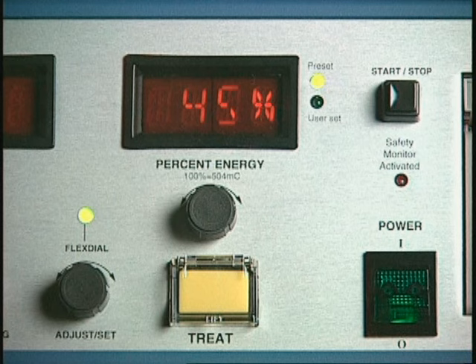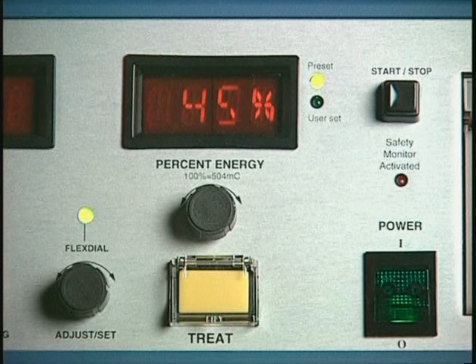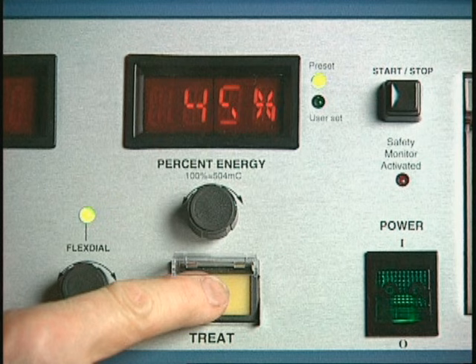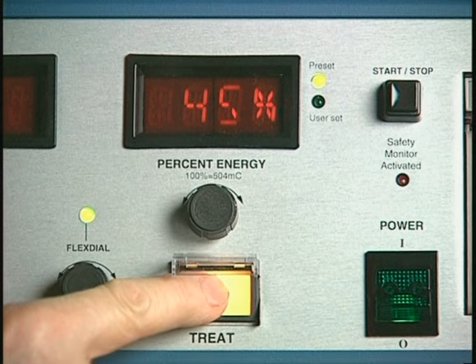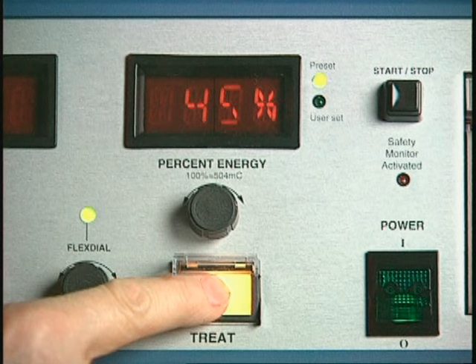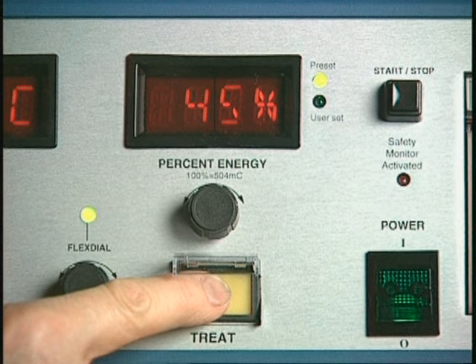When the Treat button is first pressed, a 1-second continuous clear tone warning signal sounds, during which the current will not be on. After the 1-second warning signal, the Treat button lights up and a buzzing tone sounds while the current is on. The light and tone both remain on for the full duration of the treatment stimulus and turn off when the stimulus delivery is complete.